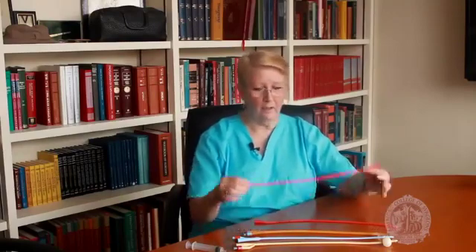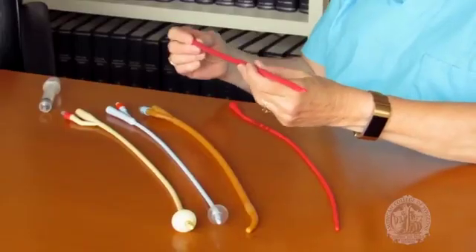The other type of catheter is a non-indwelling or straight catheter. These are used when the patient only has to be catheterized once. They are still placed under sterile technique, but they don't stay in the body after the bladder is drained. They are not connected to a collection system but instead drain directly into a basin. Many people self-catheterize at home using a straight catheter.